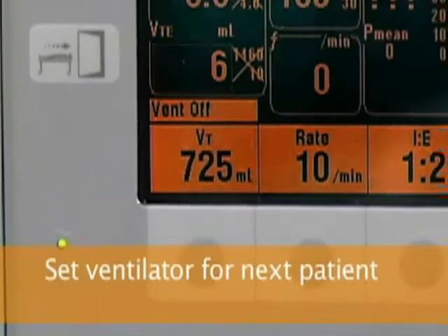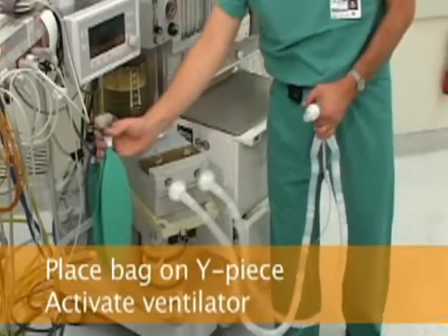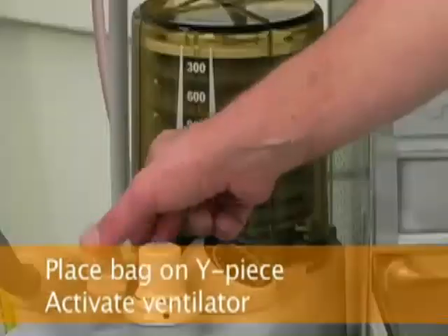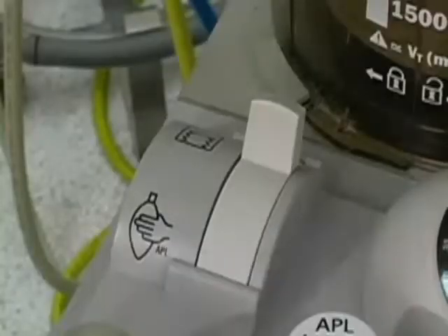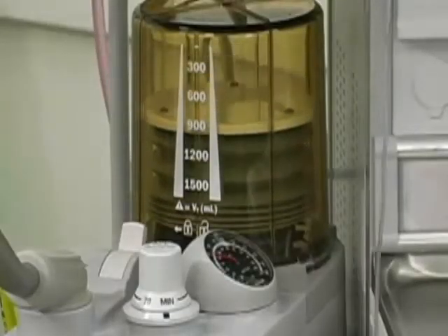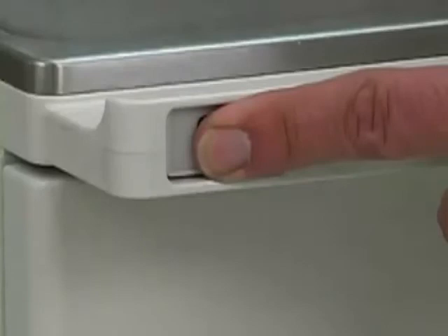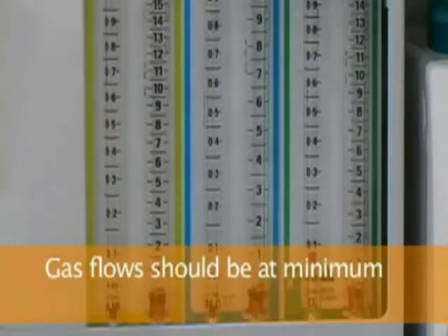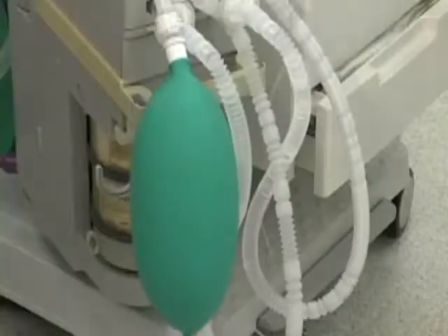Start by setting the appropriate ventilator settings for the next patient. Then place the bag on the Y piece of the breathing circuit and activate the ventilator by turning the bag ventilator switch to the ventilator position. Push on the oxygen flush valve until the bag and the ventilator bellows are filled. While the gas flows are minimal, verify that an appropriate tidal volume is delivered.